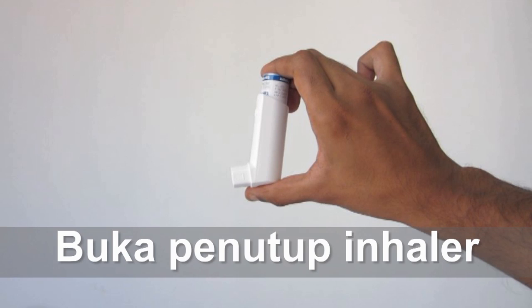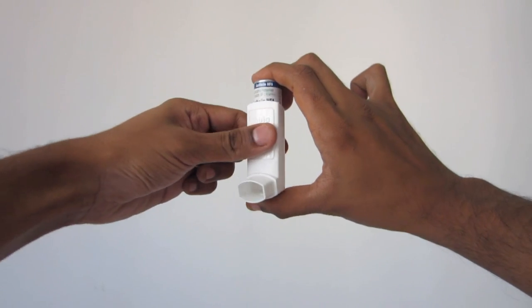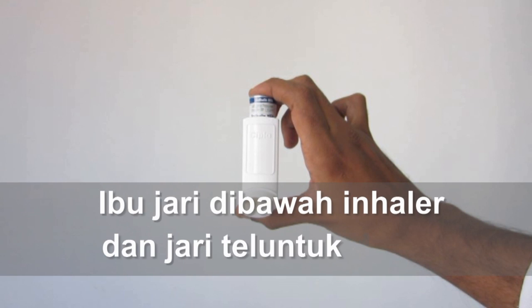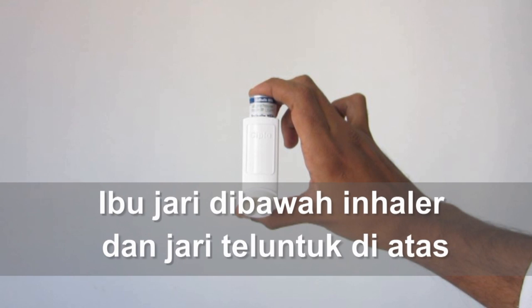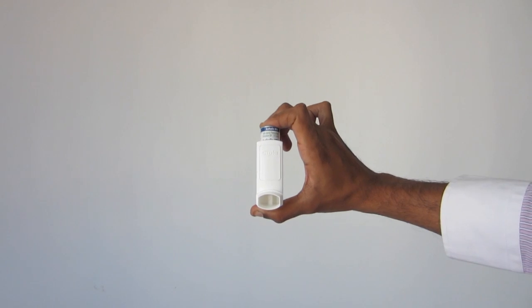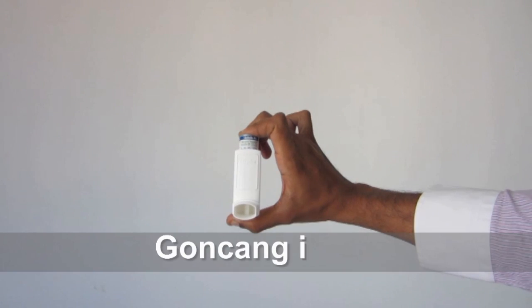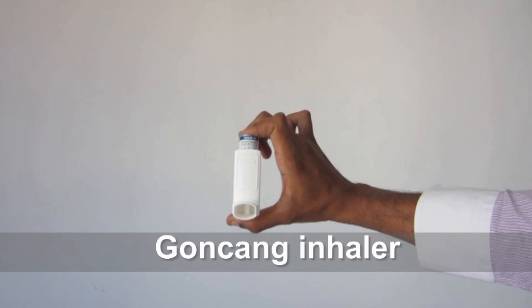Buka penutup inhaler. Letakkan ibu jari di bawah inhaler dan jari telunjuk di atas. Goncangkan inhaler beberapa kali. Lepaskan nafas dahulu.